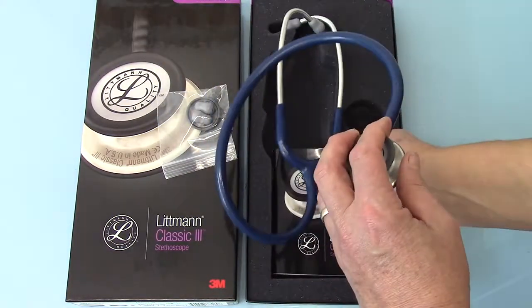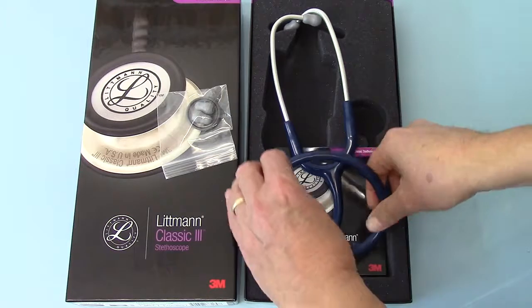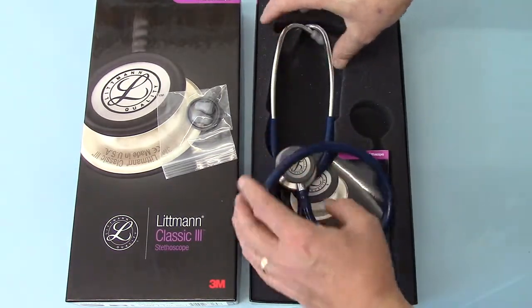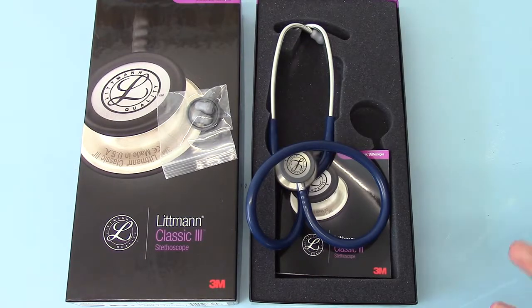What's it like to use? Well it's very easy to use. It's a standard auscultation unit, graded by 3M as a sort of medium unit. So obviously this isn't going to give you the auscultation quality of the cardiology units or electronic stethoscopes, but for day to day and general medical use this is going to be a perfectly adequate and very good unit for cardiac and respiratory auscultation.